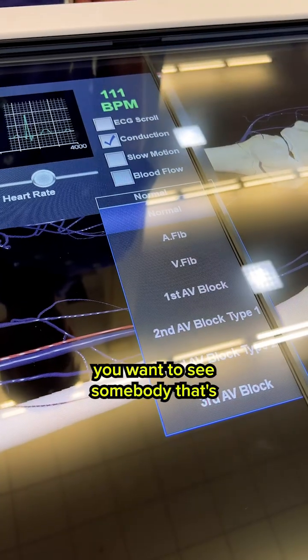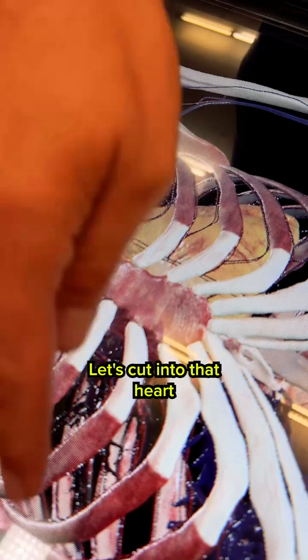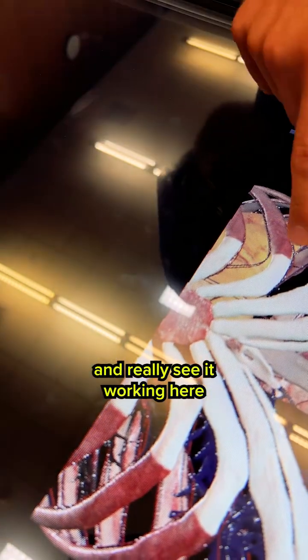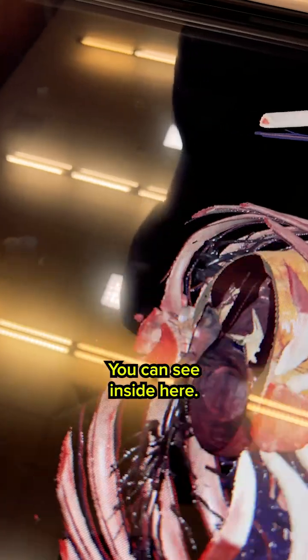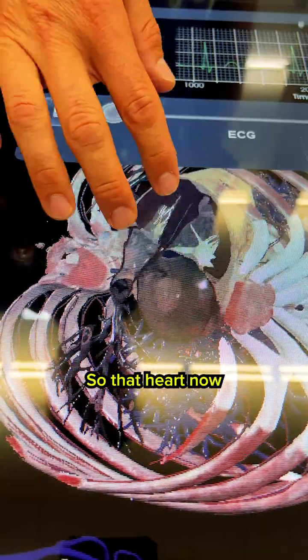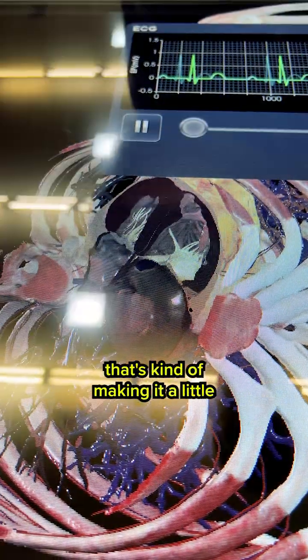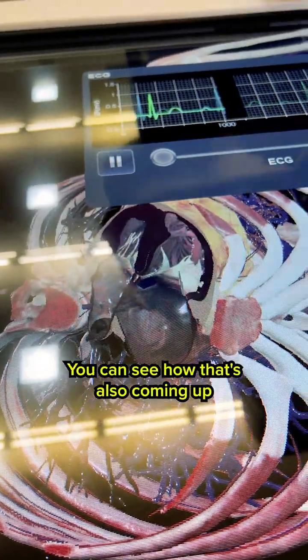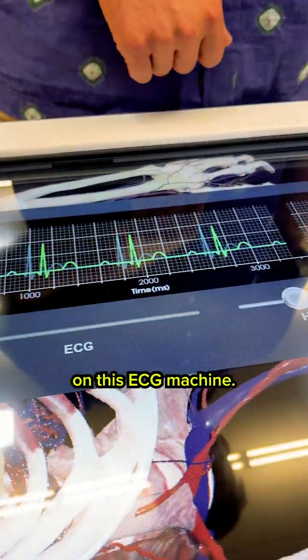Let's say you want to see somebody that's going through a cardiac arrest. Let's cut into that heart and really see it working here because it's kind of struggling. That heart now is having a blockage that's making it a little more difficult, and you can see how that's also coming up on this ECG machine.